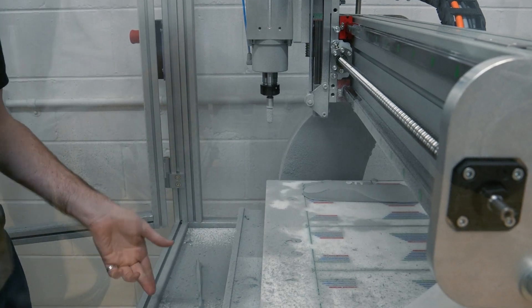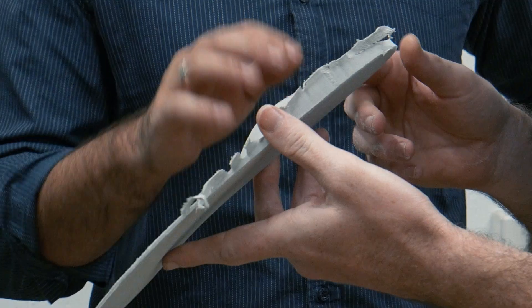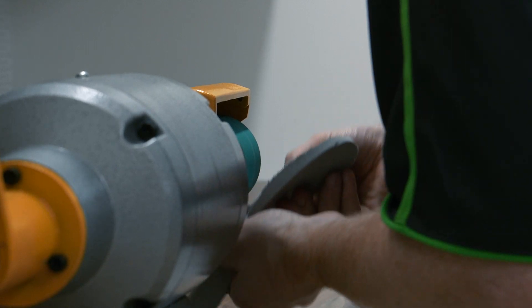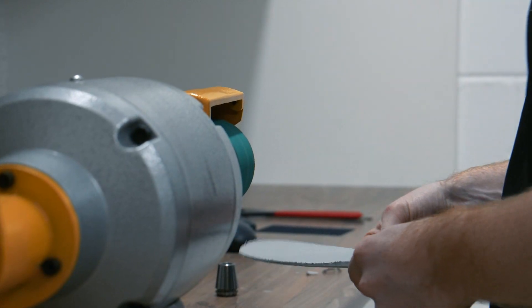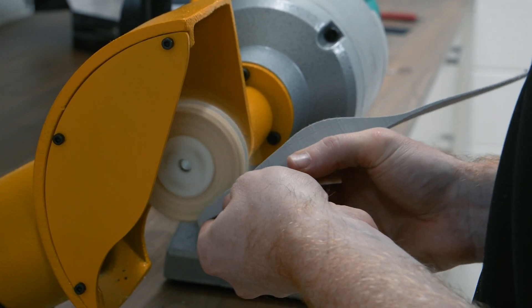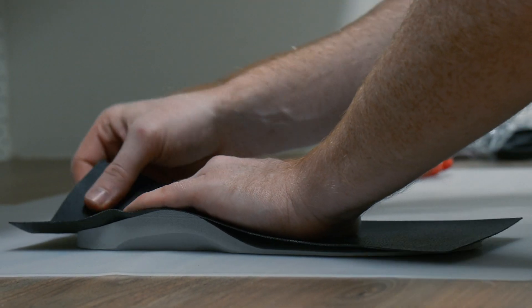This isn't the first time I've seen the 5.0 Robotics CNC. The first time was in a clinic in Tasmania and it made such an impression that we knew we had to have it for Orthotics by Design — it really got us thinking about setting up the lab in the first place. In combination with Laser Cam's cloud system and the 5.0 CNC milling machine, it made for the perfect platform to own and operate a lab. The interface is easy to use, there's a computer on the machine itself, always on — you can walk up and start manufacturing in minutes.